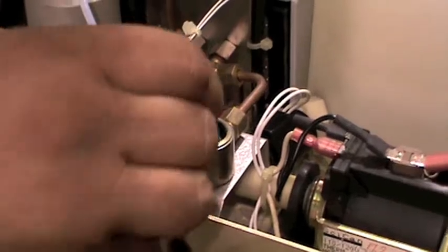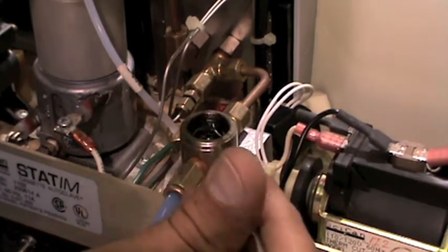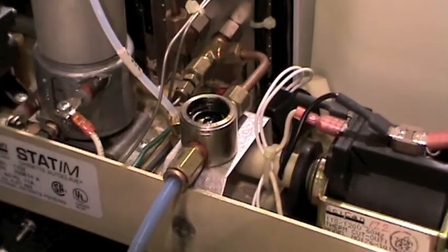Next, remove the spanner nut itself. If there is any debris found in the valve body, it might be a good idea to blow air through all the orifices. Clean the plunger, make sure it slides smoothly in the plunger tube, and reassemble the solenoid valve.